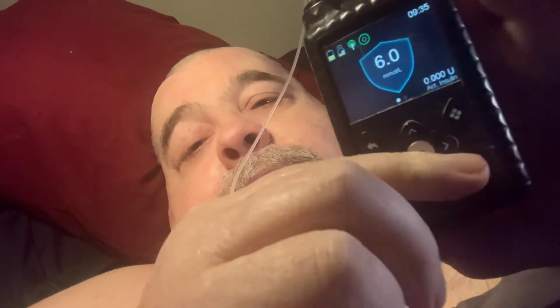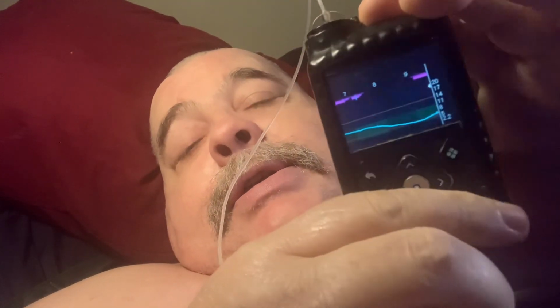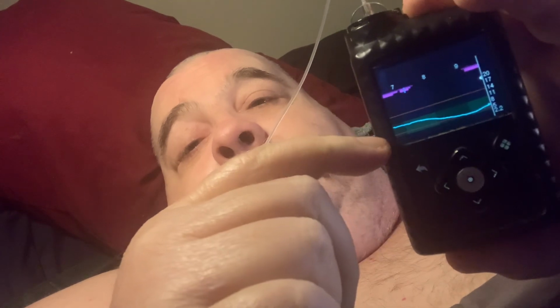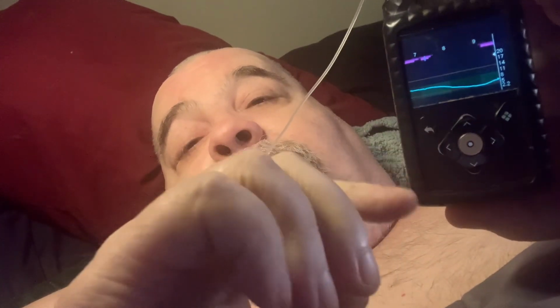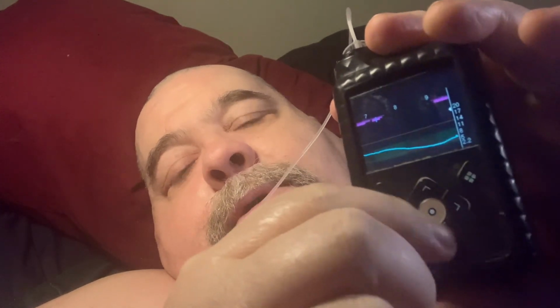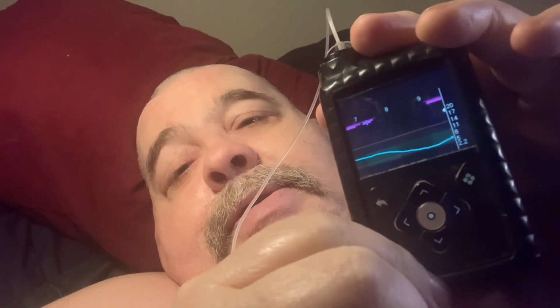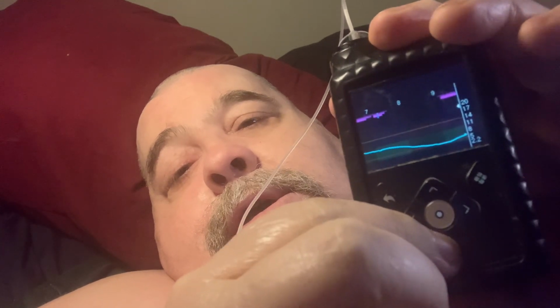Press that arrow, it'll get you that. And then you press this arrow, it'll get you to your graph. Now these graphs are kind of nice, kind of give you a look at your last 24 hours. If we go, whoops, sorry. Oops, back. Okay, so we press it again. And go down.